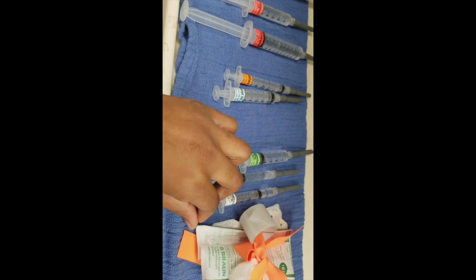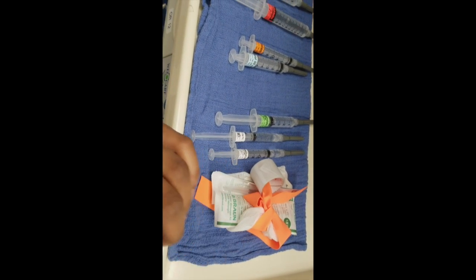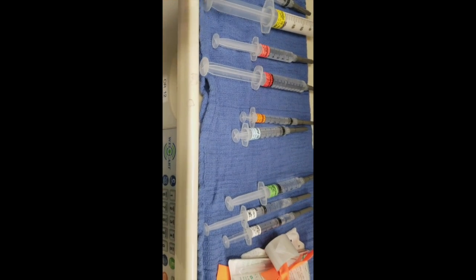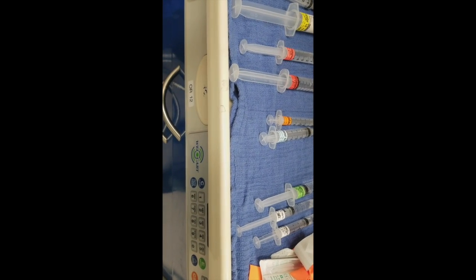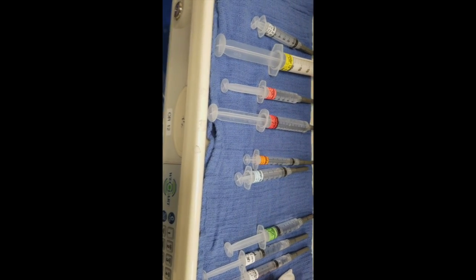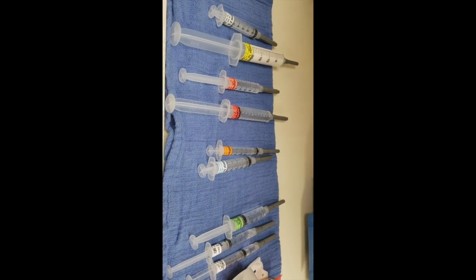And I need to take these bubbles out. Always make sure I have an IV kit ready to go, just in case. You never know. And then I always make sure that I have my arm boards on, my machine is working like what I said. Suction and bag. Bougie. This is a bougie.